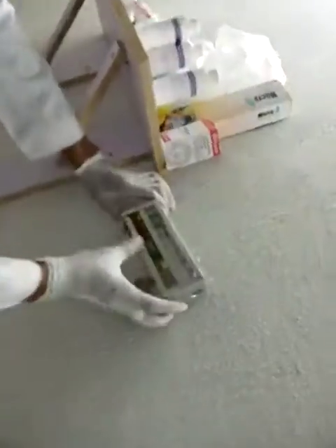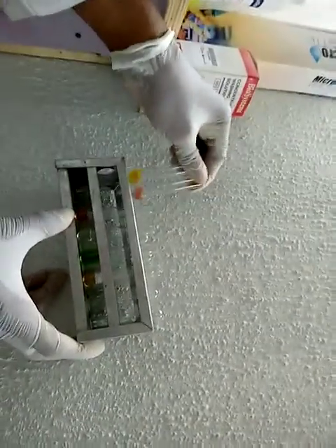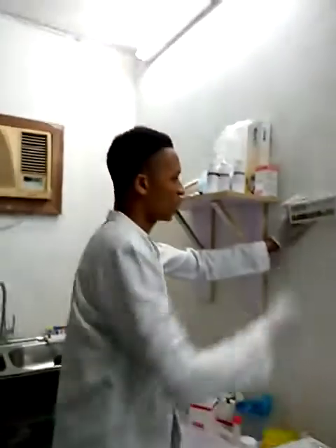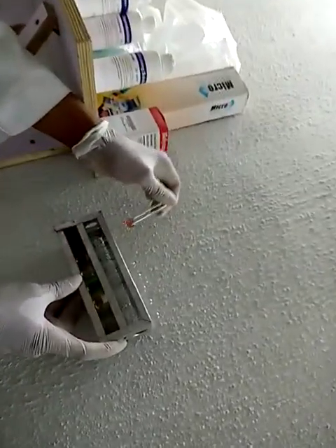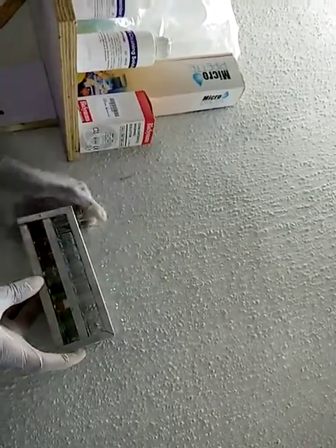So now you can see from here the concentration of these samples are very okay, and from the color, the intensity of the color is also a determining factor. It also determines the absorbance and the concentration. You can see that all the concentrations for total cholesterol and triglyceride are perfectly okay, and it also aligns with my results.